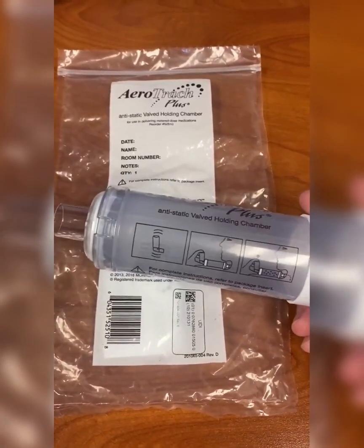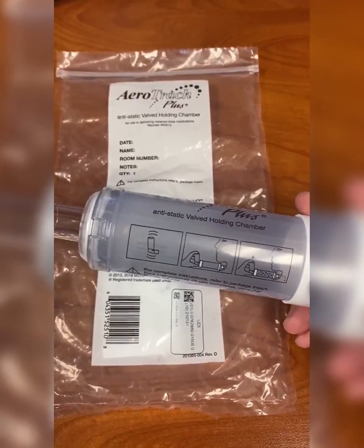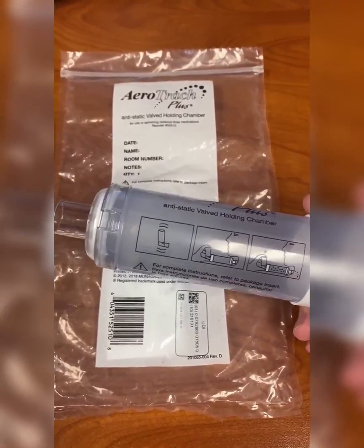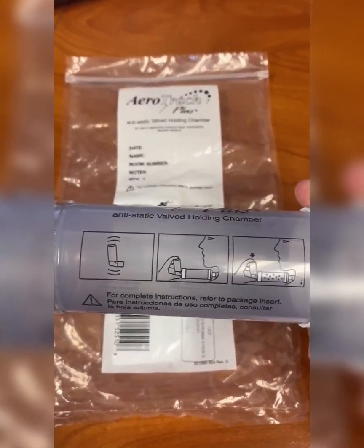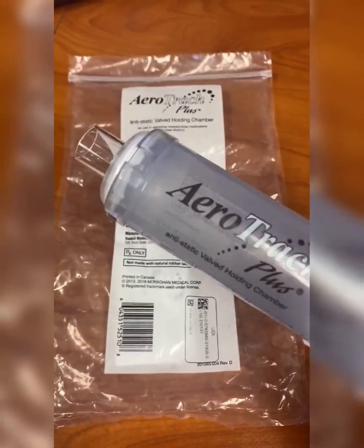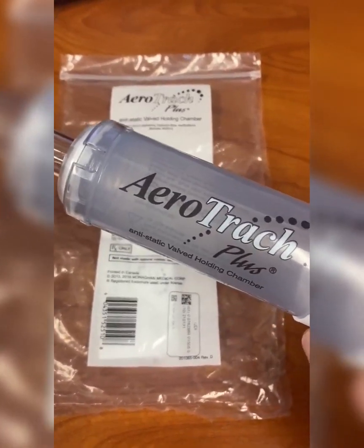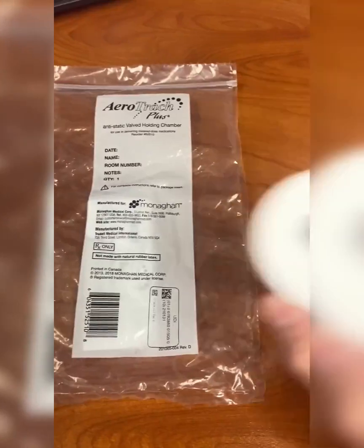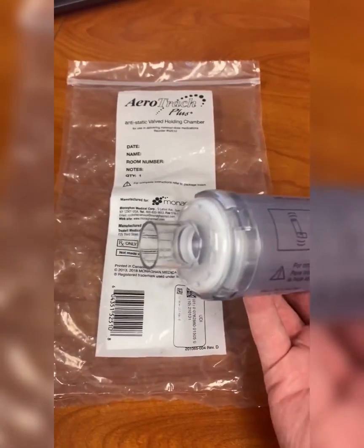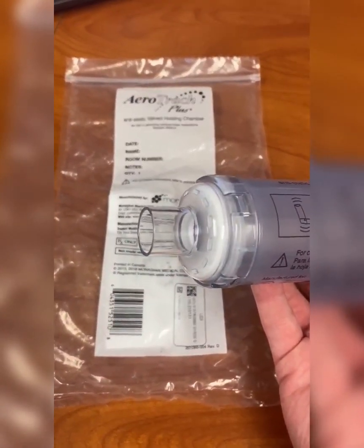The first one is an MDI spacer that's adaptable to your trach. So if you have an order for your trach patient to receive an MDI, I would grab this spacer. It's down in 1520. Your MDI would go in the back just like normal, and then this end can go right to the trach.